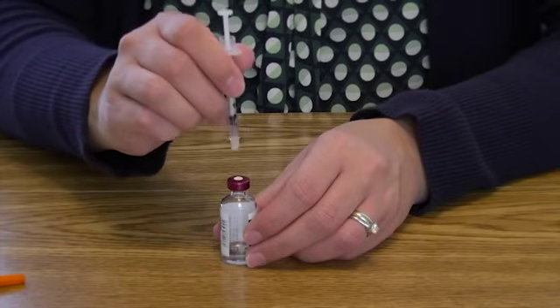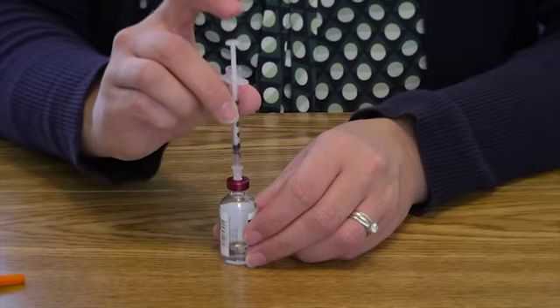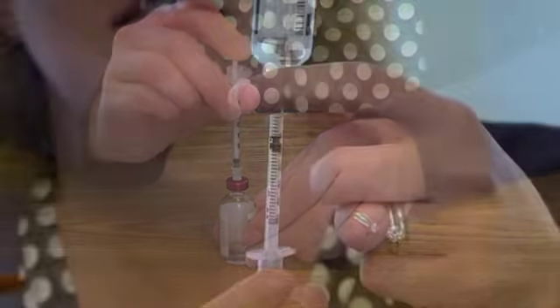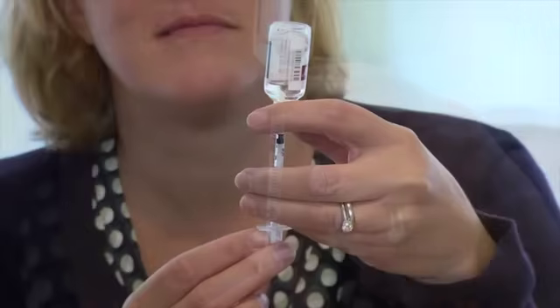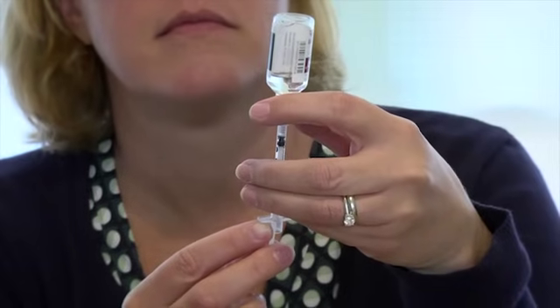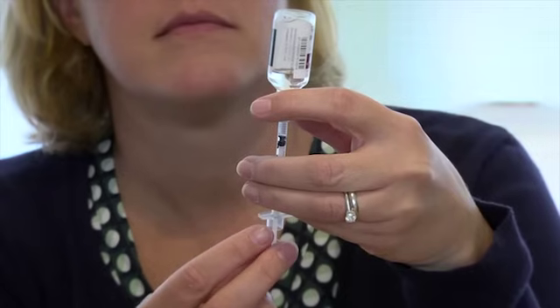Do not touch the needle. Pull back on the plunger to the unit mark for the insulin dose that has been ordered for you. Put the bottle on the table, insert the needle straight into the top of the bottle through the rubber stopper, and push the plunger down to inject the air into the bottle. Turn the bottle upside down with the needle still in it. Hold the bottle at eye level and make sure the tip of the needle is in the insulin. Make sure not to bend the needle when picking up the bottle.